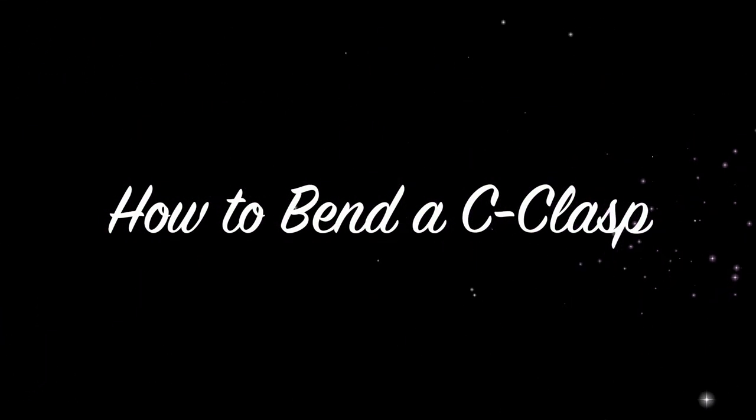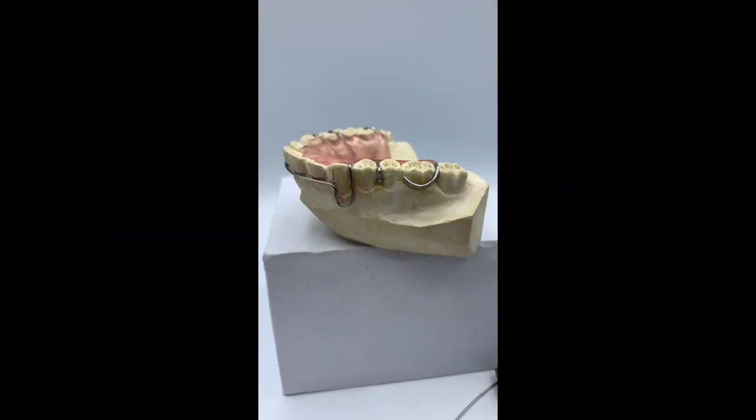Hello and welcome. In this video you will learn how to bend a C clasp for a Hawley retainer.